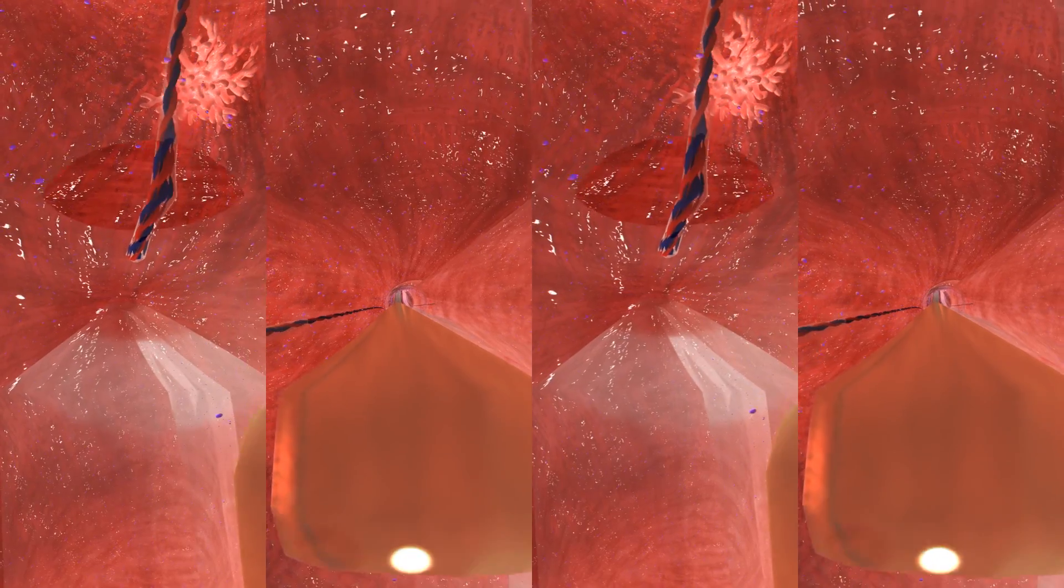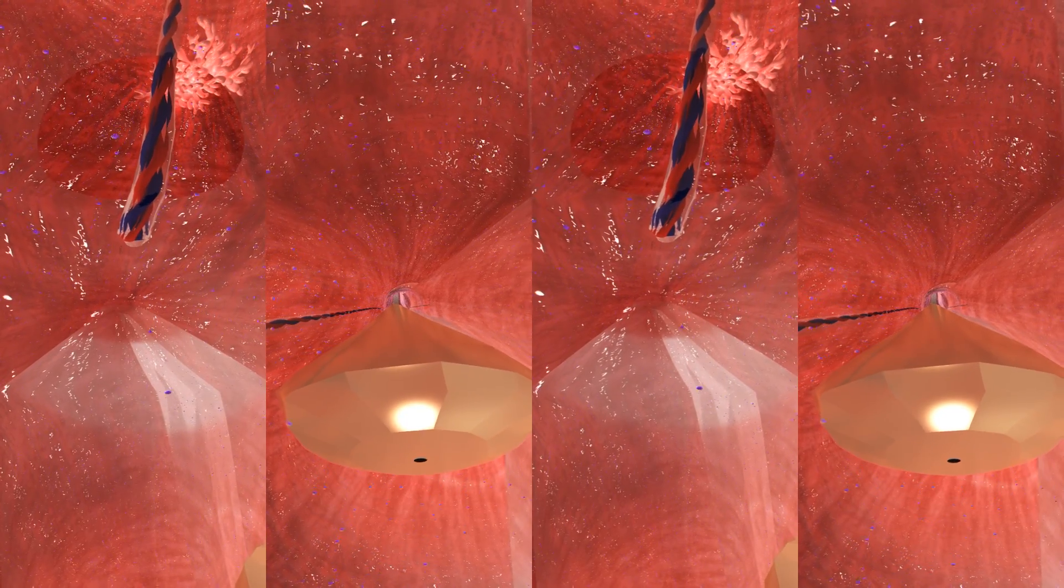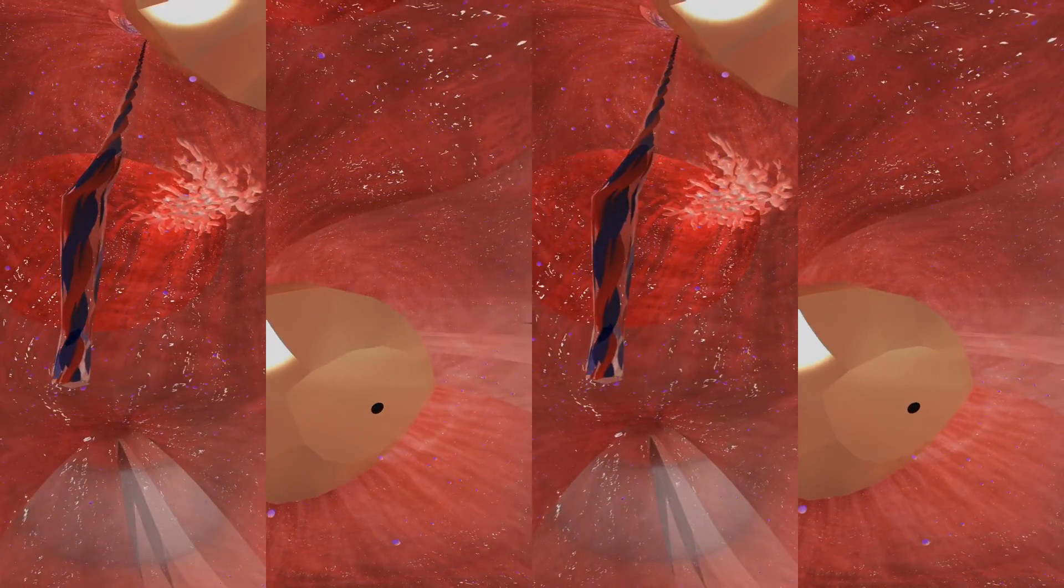You may also notice five precise thermometers, thermocouples, placed in the catheter. These threads are not much wider than one single strand of hair.